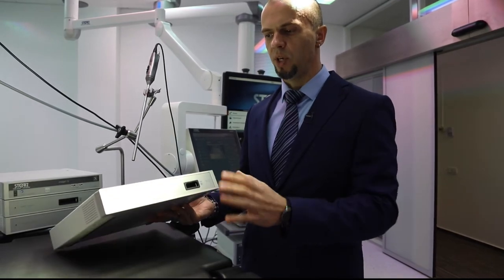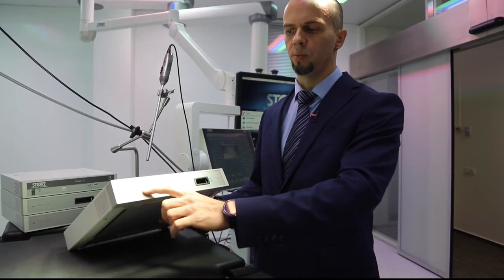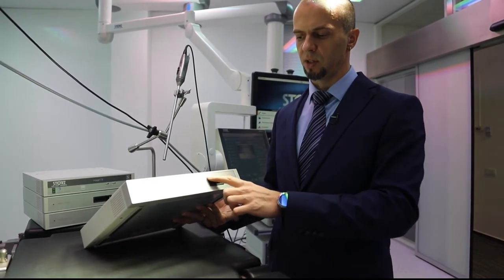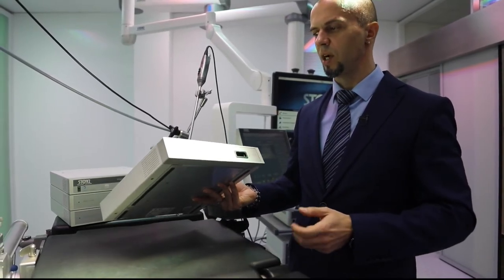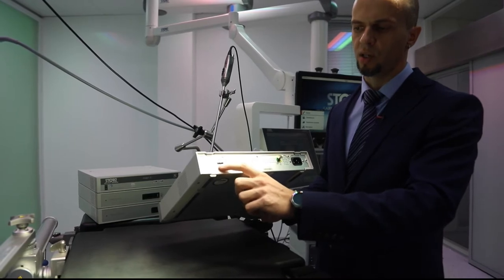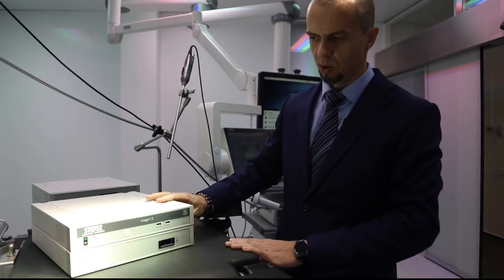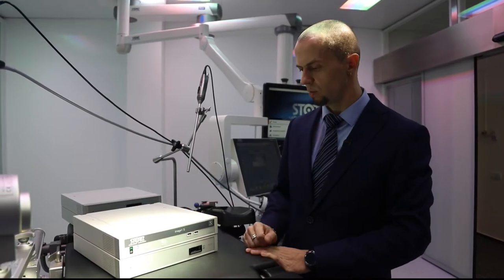Переходим к нашим линк-модулям. Первый и главный — это H3-Link, модуль для трёхчиповых видеосистем TC300. Он имеет на передней поверхности разъём для трёхчиповых головок видеокамер. В основном это наша любимая головка H3Z, а также более редкие модели. H3Z — это TH100 и её модификации. Сзади у модуля всего лишь два разъёма: сетевой и разъём для линк-кабеля.